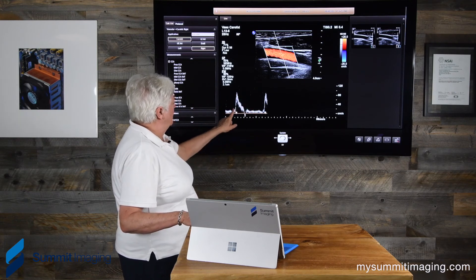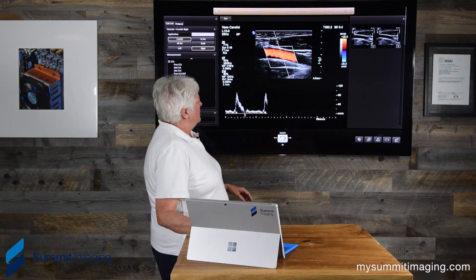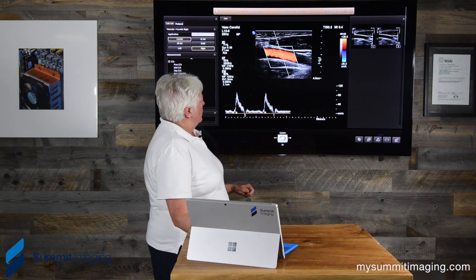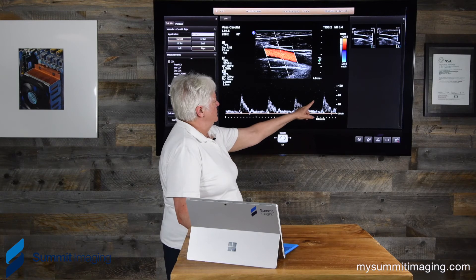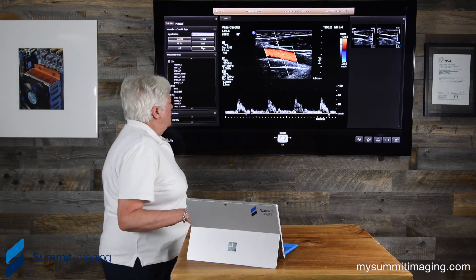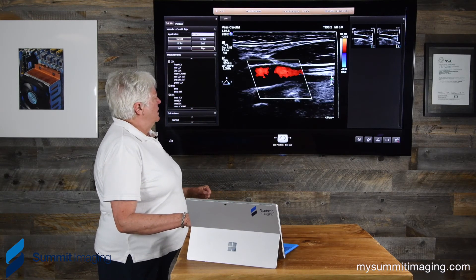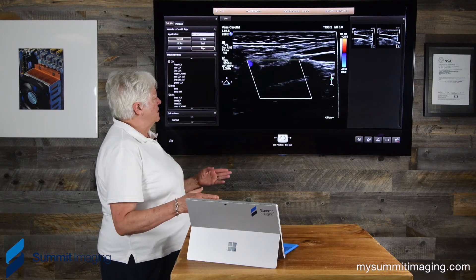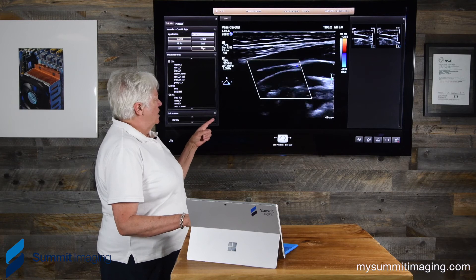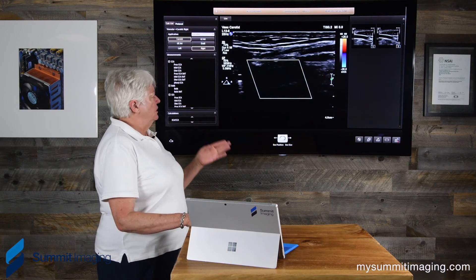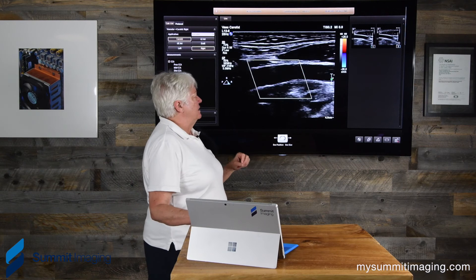Sometimes it's a sonographer issue, and once the sonographer has done everything possible to eliminate these echoes, then we worry there's a transducer problem. This area should be black inside when you're looking at a large vessel. This is nice color fill; this is too many echoes. It's important that the transducer have all the crystals appropriately working so that we get good color fill and clean Doppler peaks.